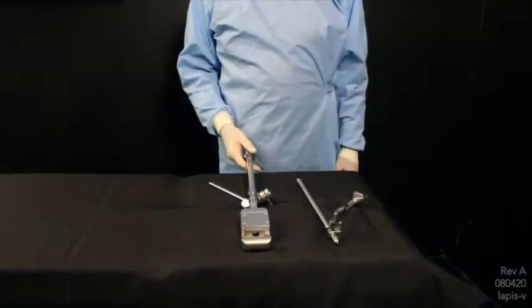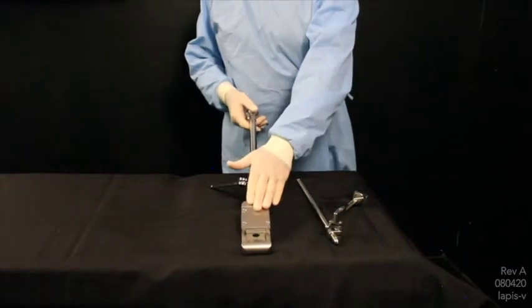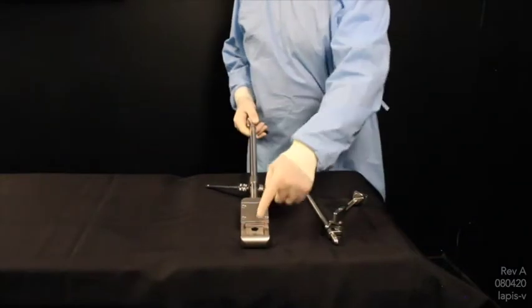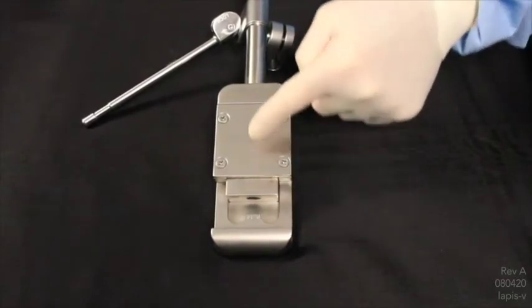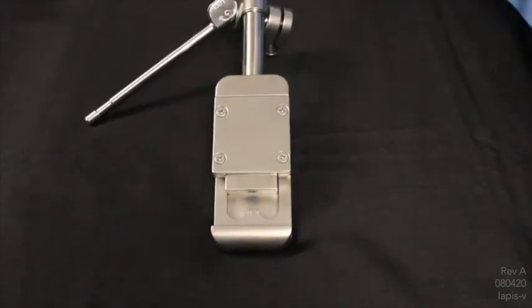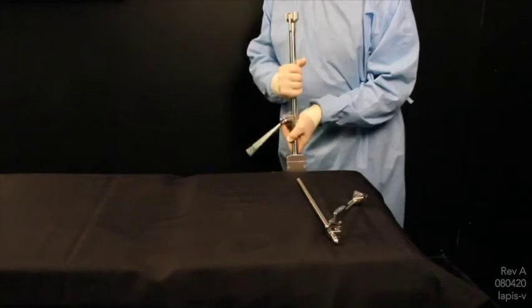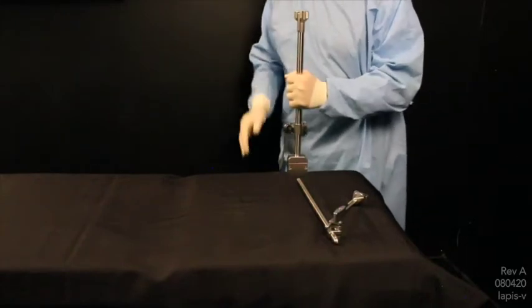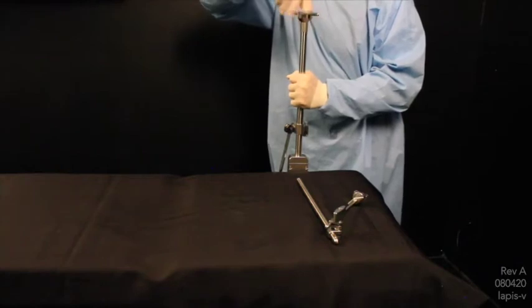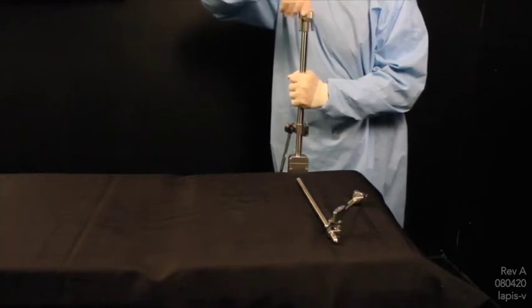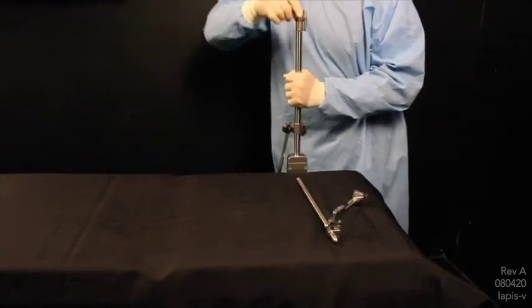When setting up the rigid instrument holder, first grab your Elite Rail Clamp. Make sure that the tongue is completely reseated into the rail clamp. Attaching to the bed, grabbing securely in the center and pulling upward. Tighten down.